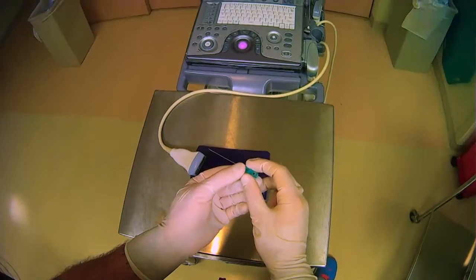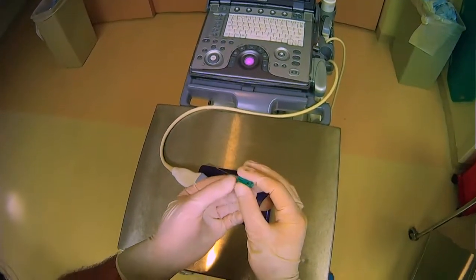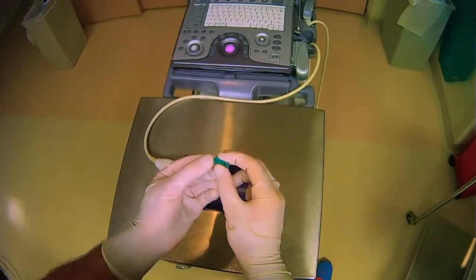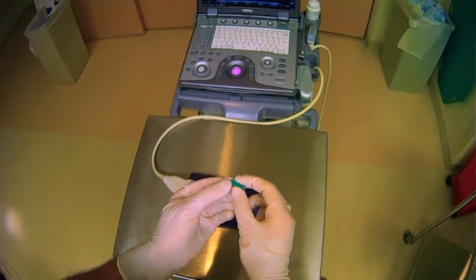So for the purposes of these videos, I'm going to be using a micropuncture needle. What I want to show you is that for everything that you're handling, there's also an orientation that you have to keep in mind.